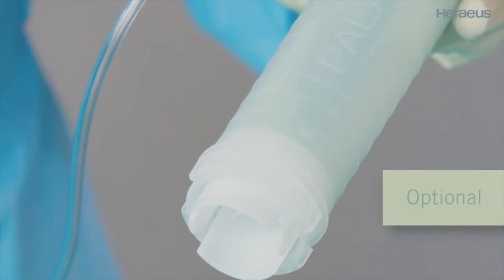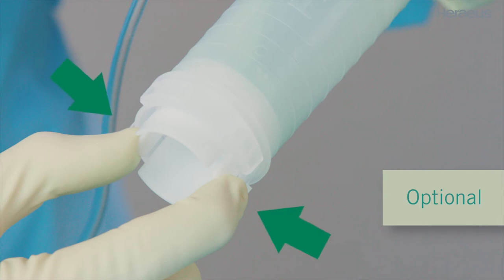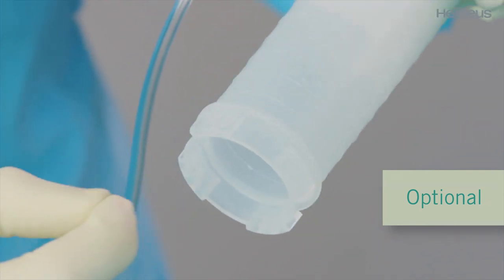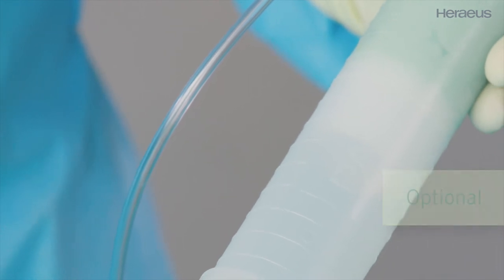If collection under vacuum on the tray station is not possible, release the base of the cartridge manually by pressing the two small tabs. The cartridge base moves upward rapidly under vacuum and thereby collects the bone cement.